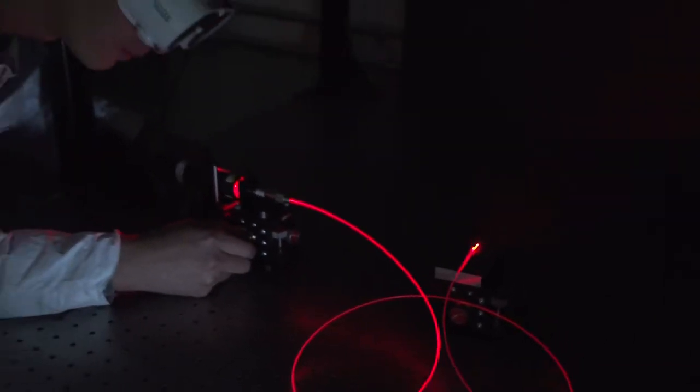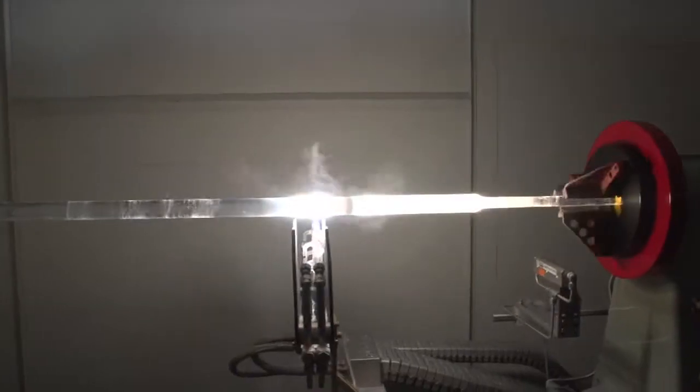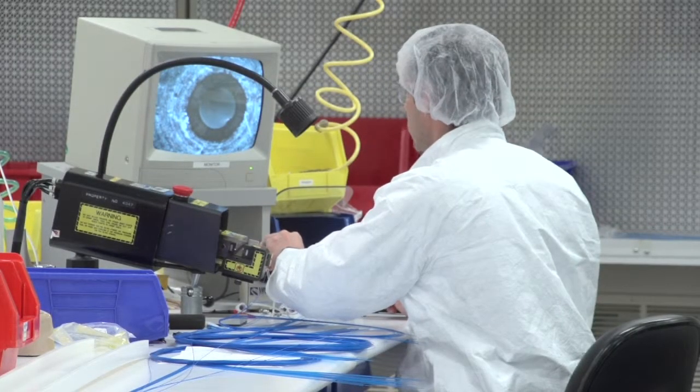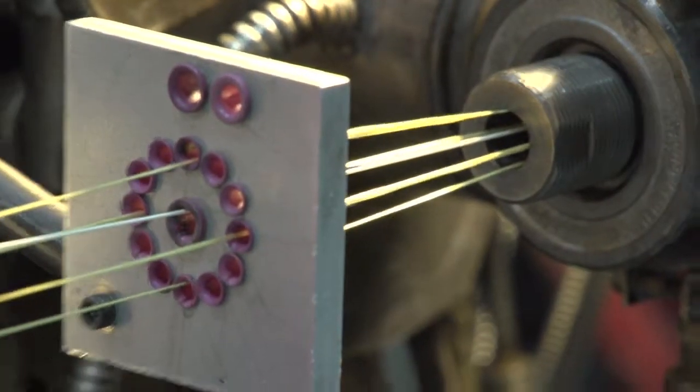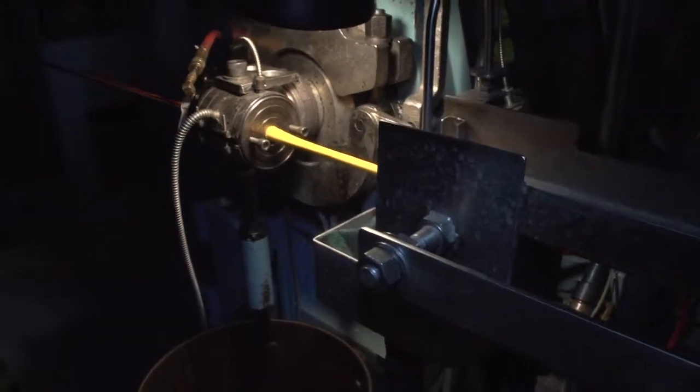OFS is a vertically integrated medical optical fiber and assembly manufacturer. Preforms, made with a proprietary deposition process, are used to draw optical fibers with custom geometries and specifications. OFS then builds custom medical-grade cables utilizing these fibers.